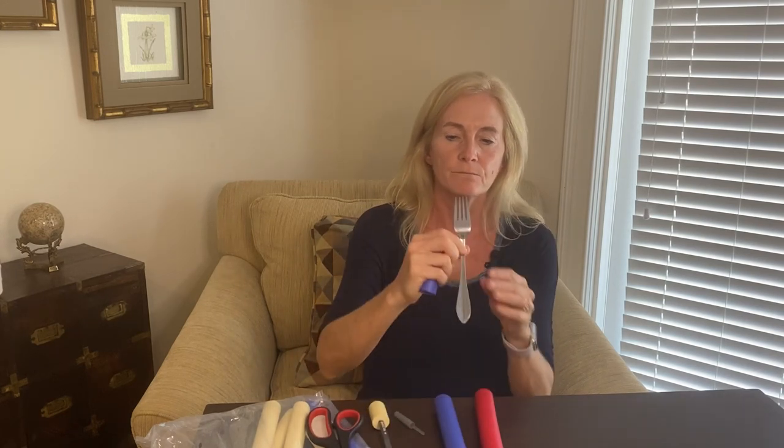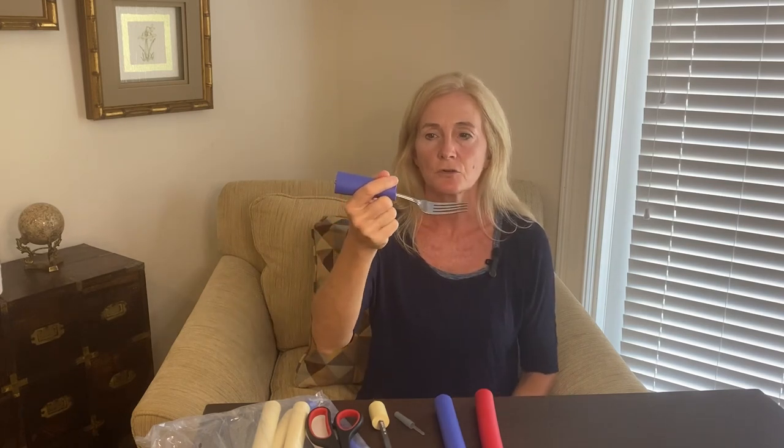The same thing you could do with a larger size to go over something like a kitchen spatula or some silverware that has a really large base to it — like this fork does — it just makes it that much easier to hold on to.